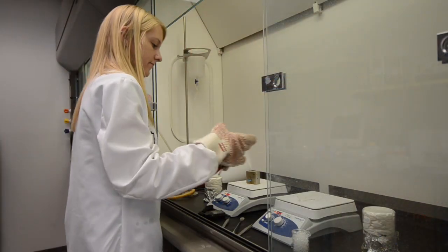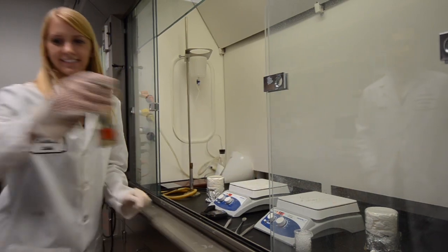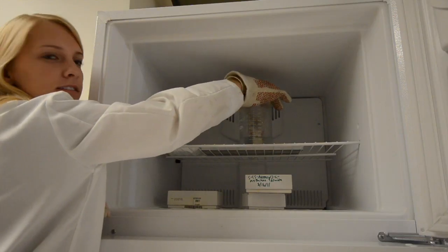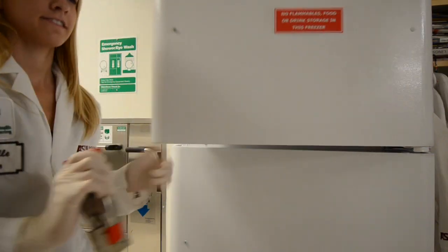I'm Erica Ingleshall and I'm a junior in biomedical engineering. On this project I make the devices and put them together, assemble them, and during the semester I'll be looking at all of the different enzymes for glucose and seeing which one works the best for our device.